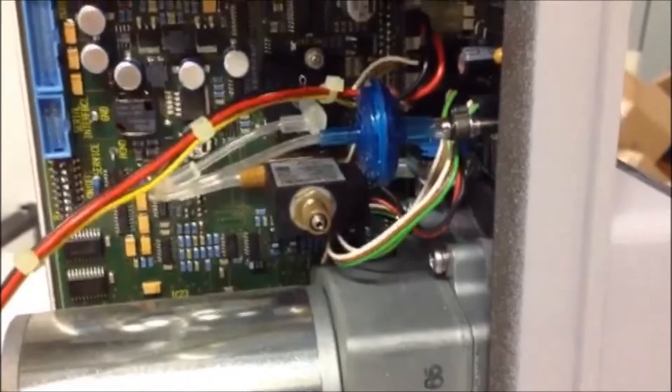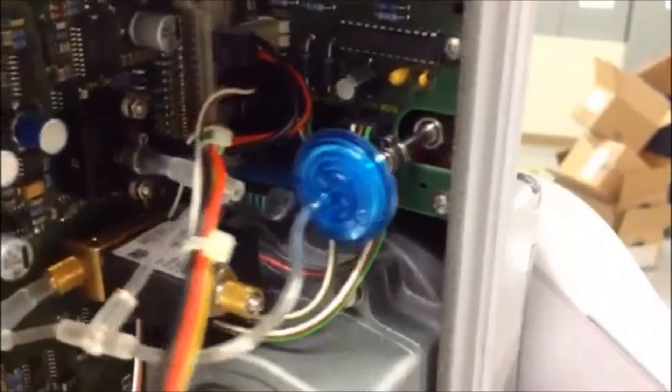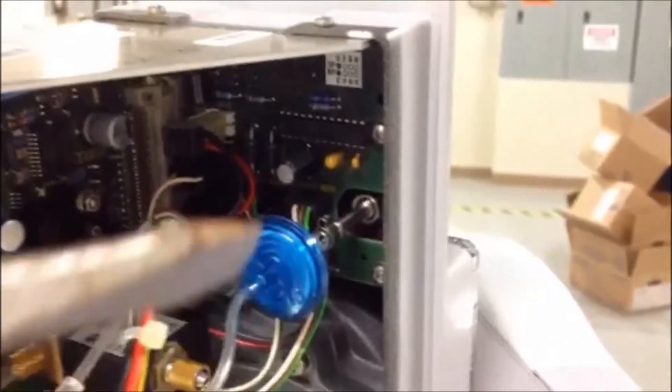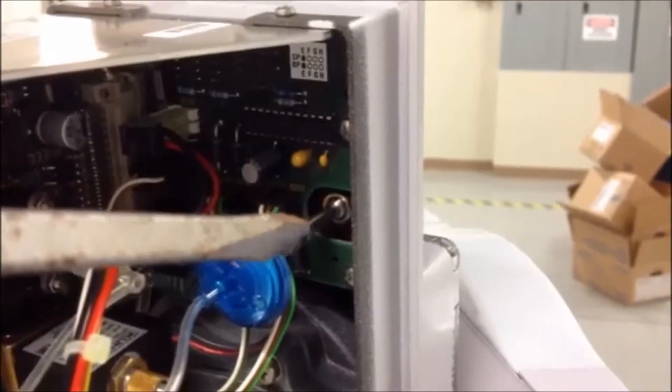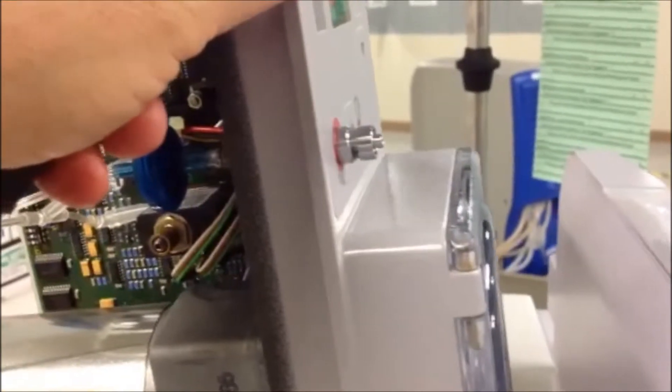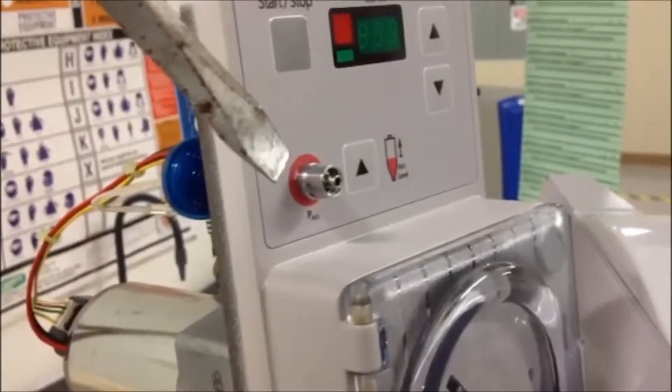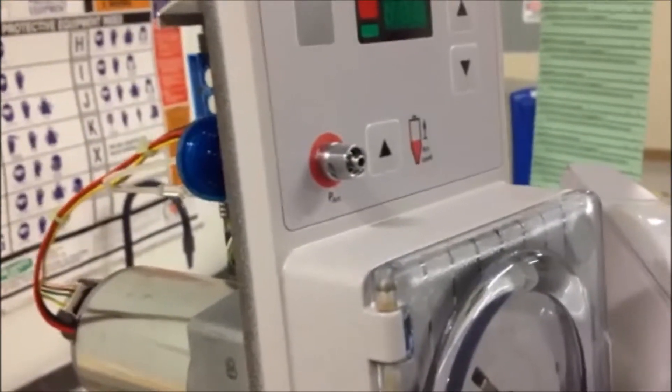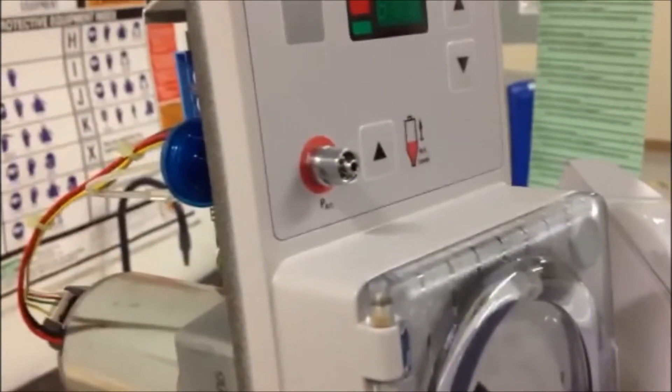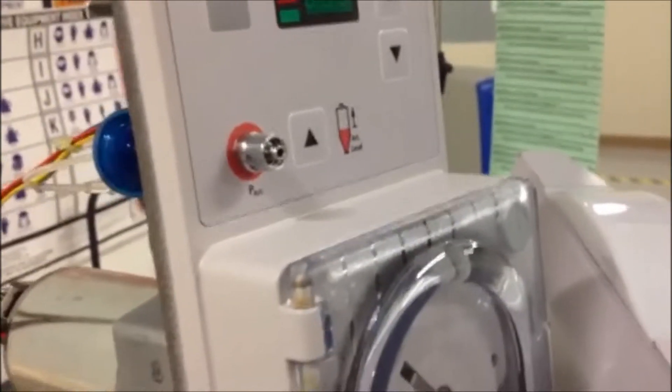Last but not least is this stem right here, which is a pressure sensor that has an end right here. That can be removed as well. It's got screws, and then this area can be used to place a resistor that you can utilize to change the pump speed.